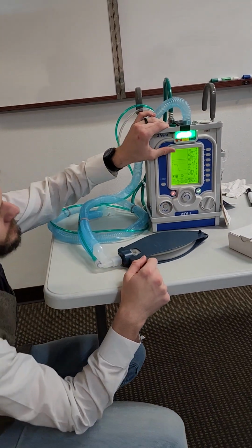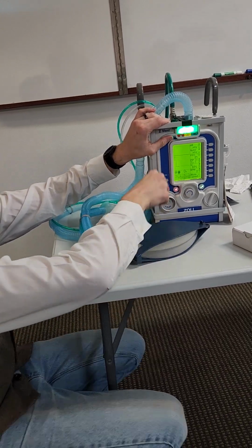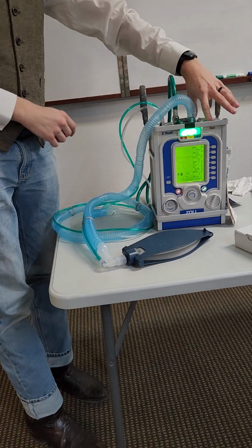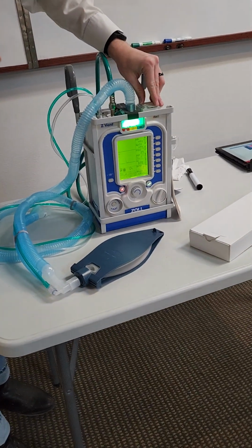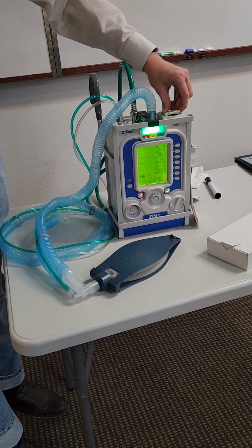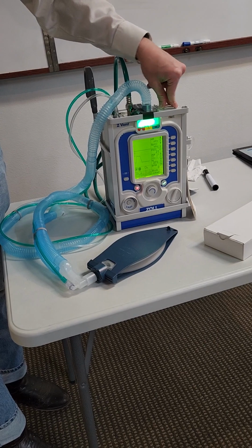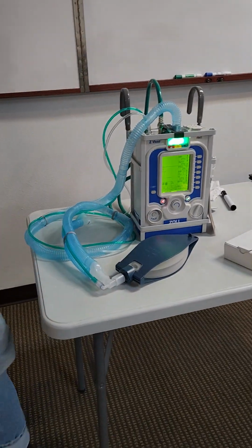And with that, you're going to see all kinds of things. So heart rate and SpO2, it says standby. To use that, we have to have a special probe attached to the top here. It plugs in. The new port has a spot for a probe like that too. We already have the monitor, so there's no need to have an SpO2 probe coming from our vent. So those first two will probably never be used.